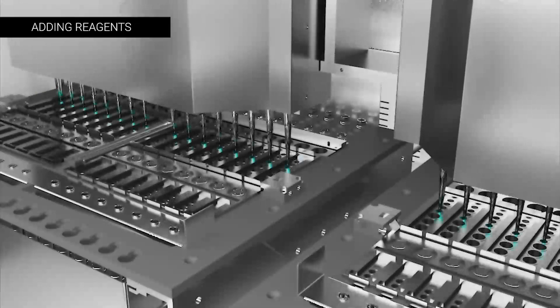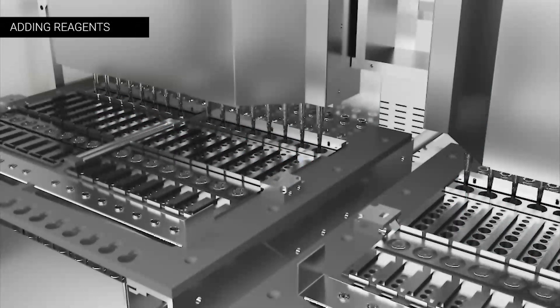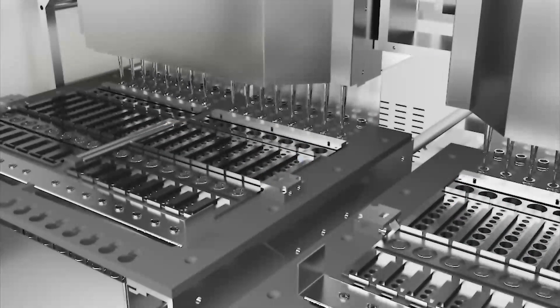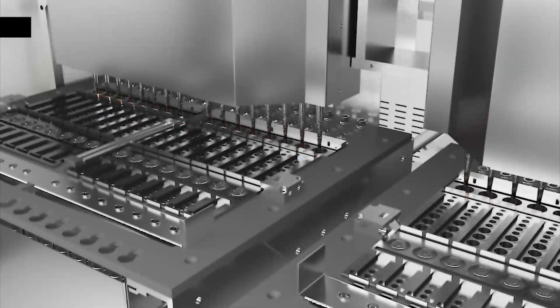CompactXL draws the required reagents from the pre-filled cartridges into the reaction tube, and also places the sample into the same tube to extract the DNA or RNA from the virus.